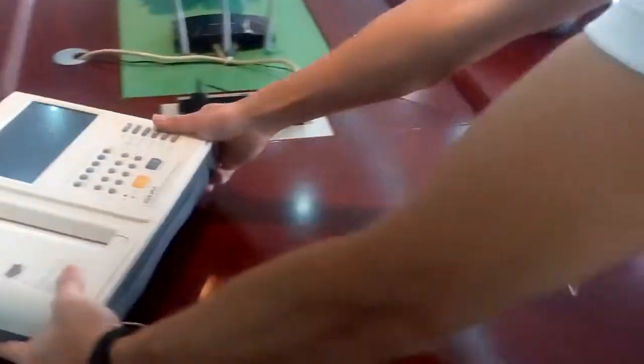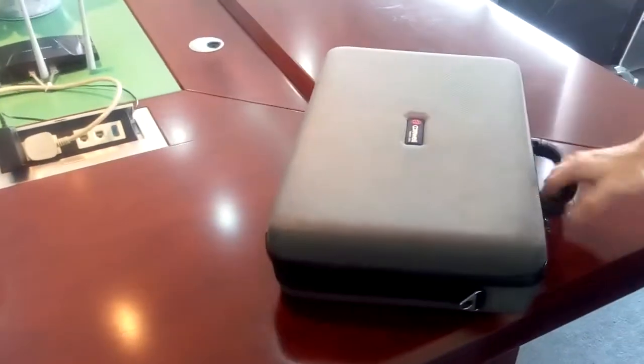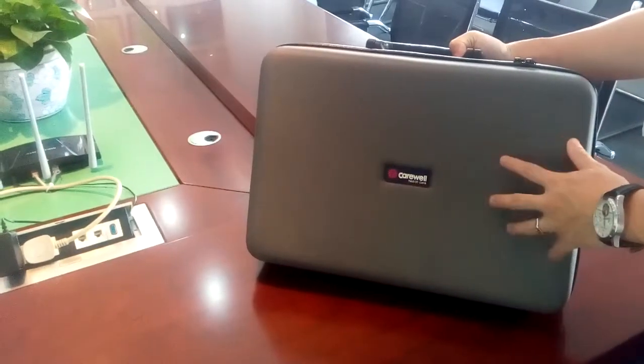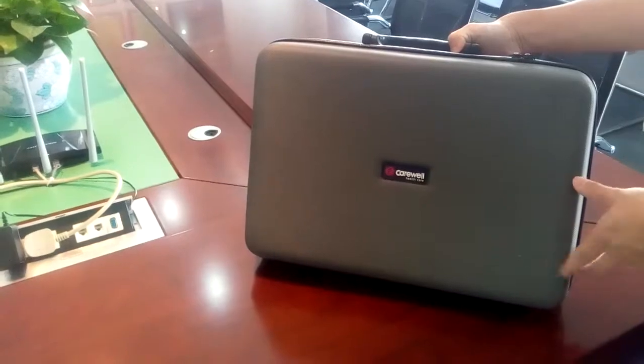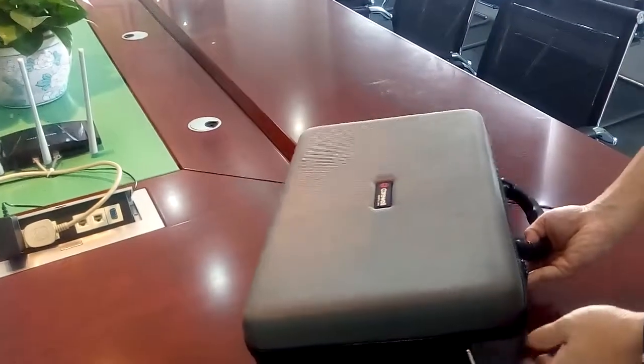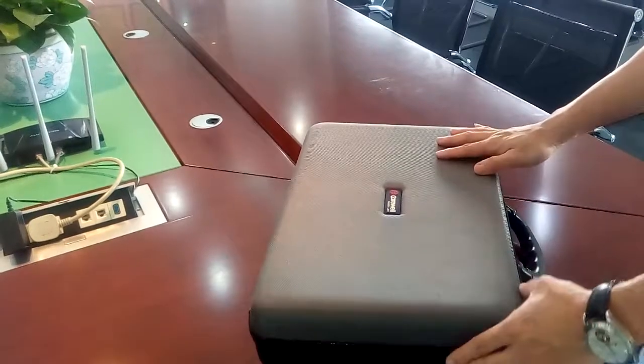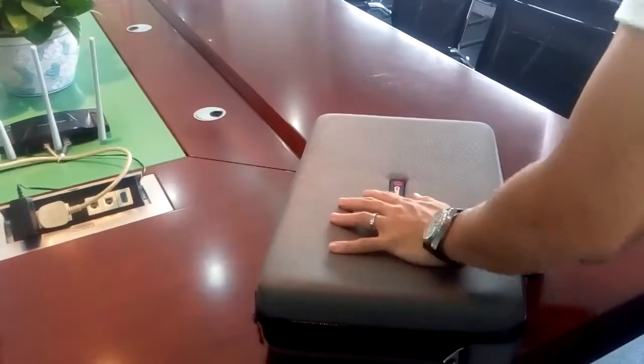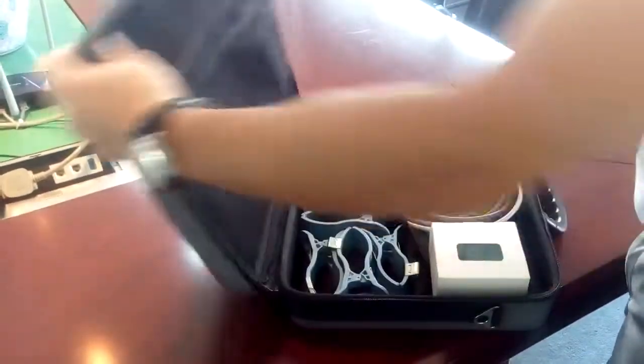Let's check the accessory box. This is a very nice box for demo purposes for our sales representatives. Our sales representatives travel the country, work with our distributors and consultants to promote the ECG to end users.